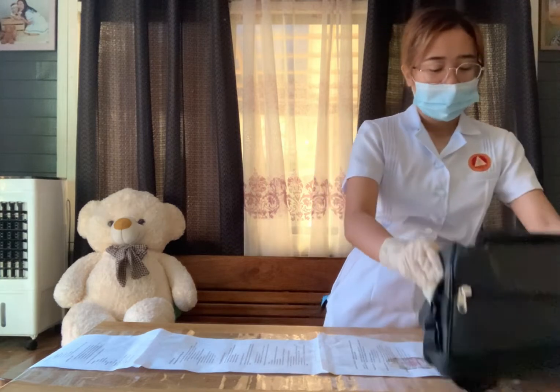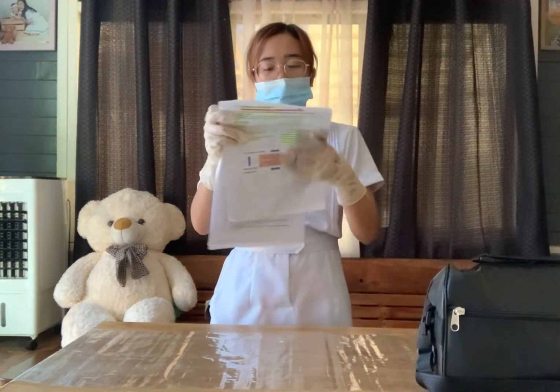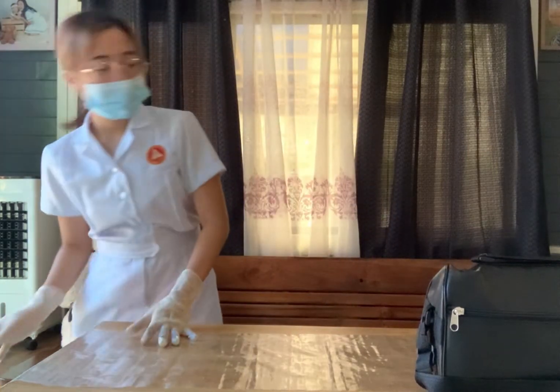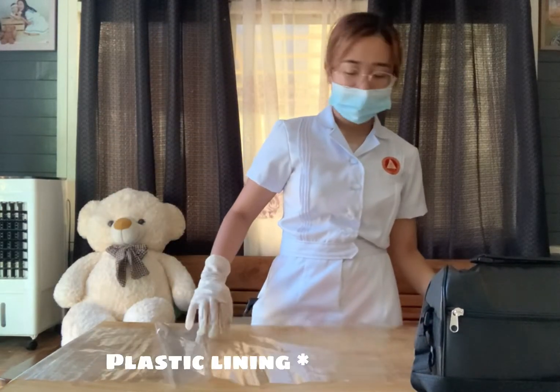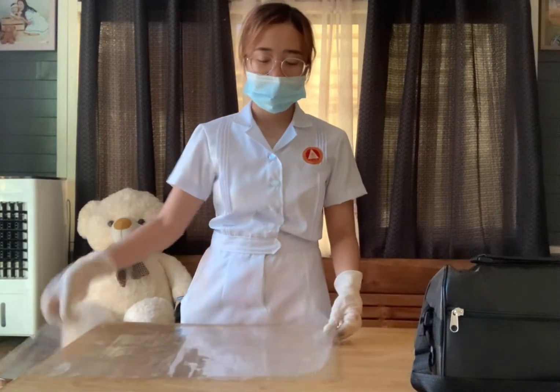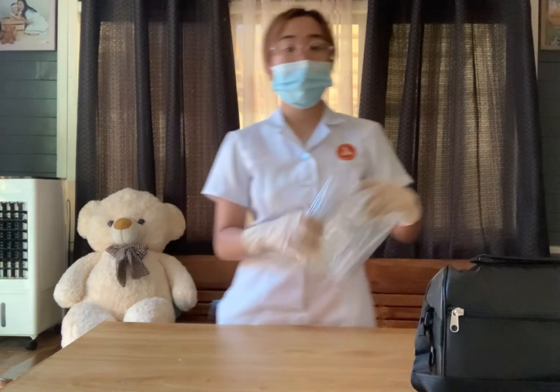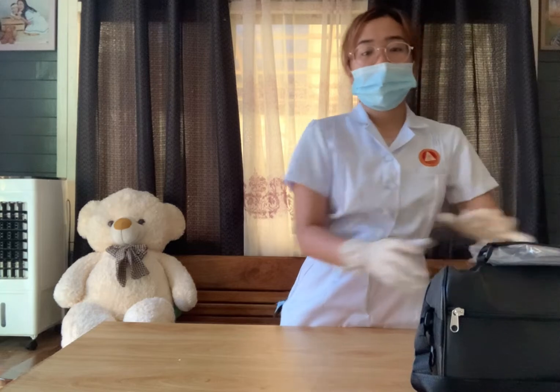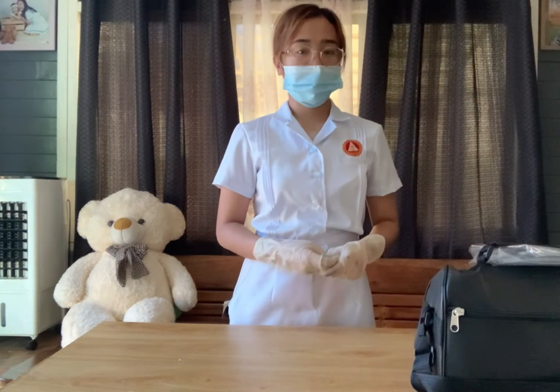Remove the paper lining, discard it, then also remove the plastic lining, making sure to fold the contaminated part inside, and place it in between your bag and its cover. After that, document all of the results gathered throughout the procedure.